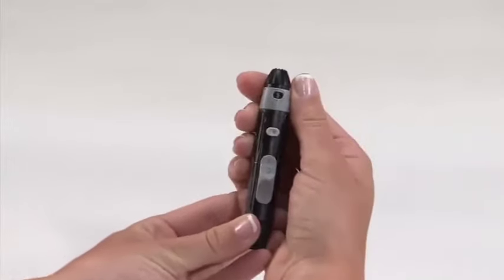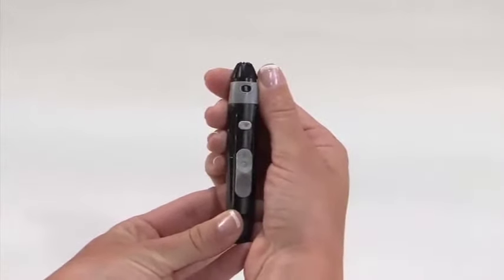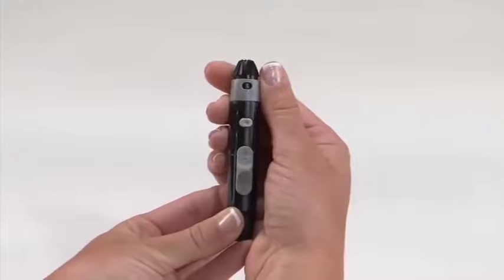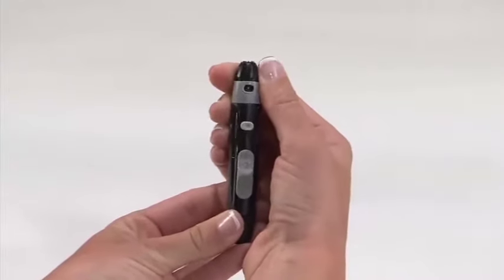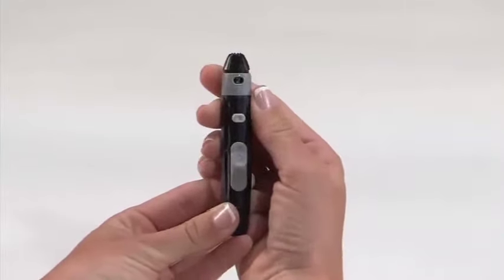Be careful not to touch the exposed needle. Set the desired depth setting. Cock the slider by pulling back the gray slider until it clicks.